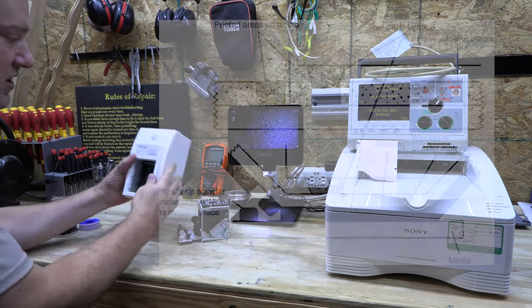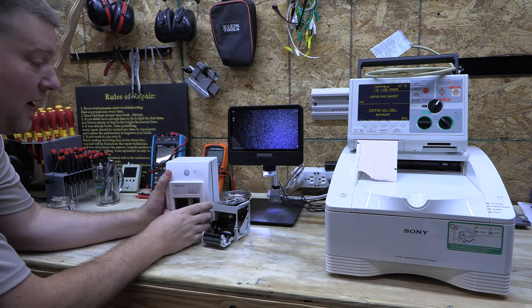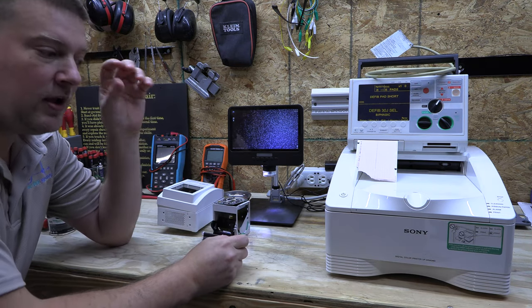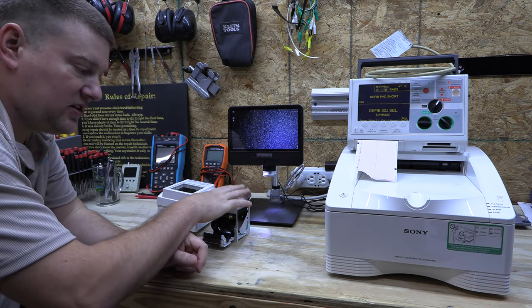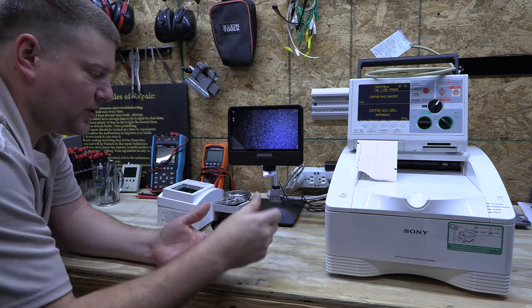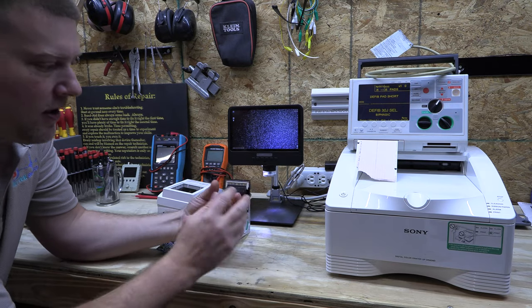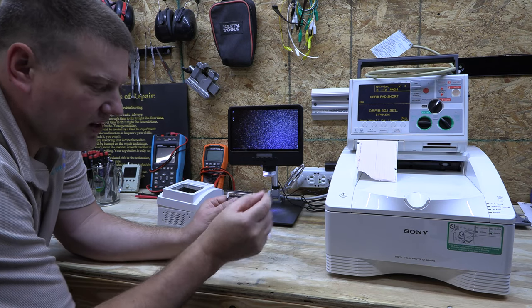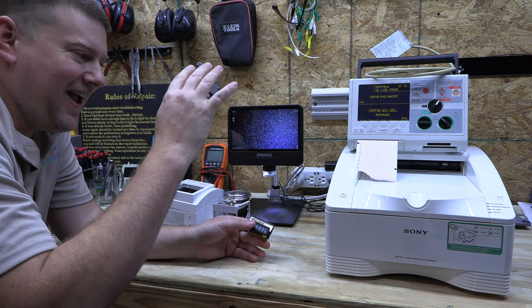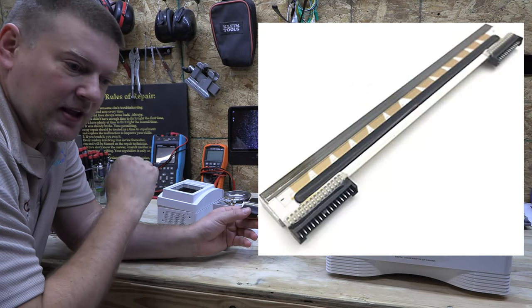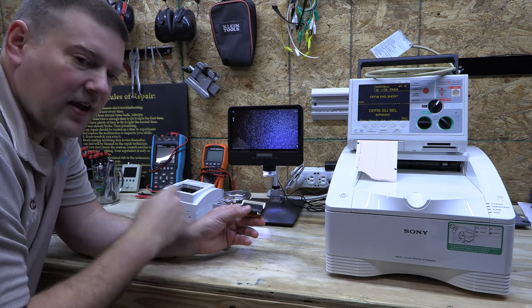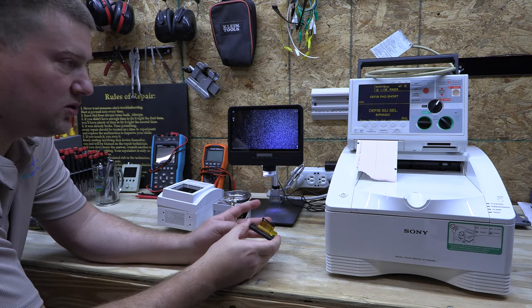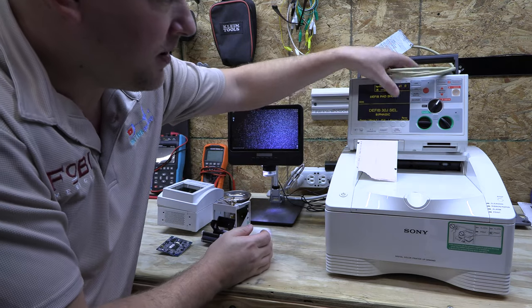Now this is a GE strip printer, which is obviously taken apart. But it uses a roll of consumable, and that roll has a special coating on it that when it encounters heat, it changes to a black color. So it's a chemical reaction that happens when it's exposed to heat. And that is caused by a tiny little set of heated elements. Each tiny little piece is part of the matrix. Each segment of the heating element has a responsibility. And the more closely those heating element segments are together, the tinier they are, the higher the resolution of the printer.